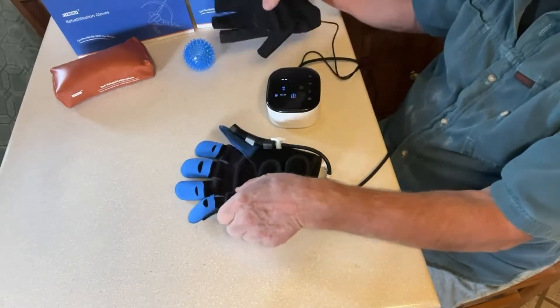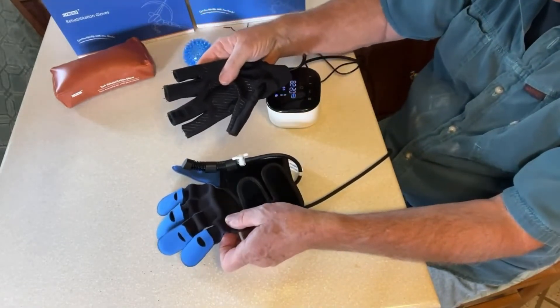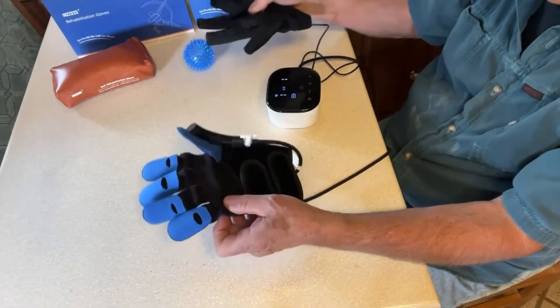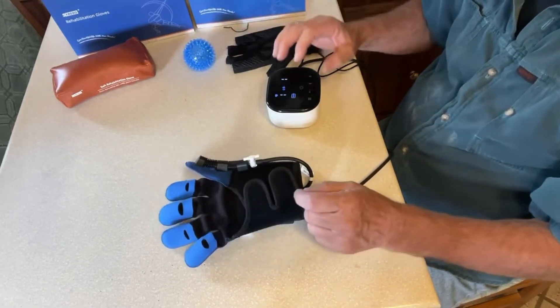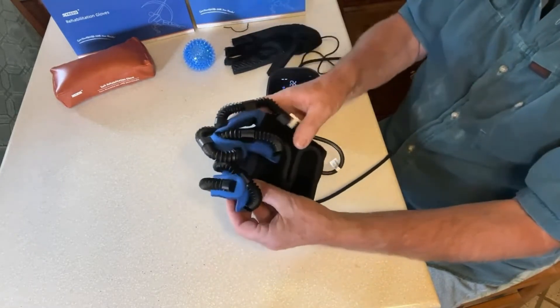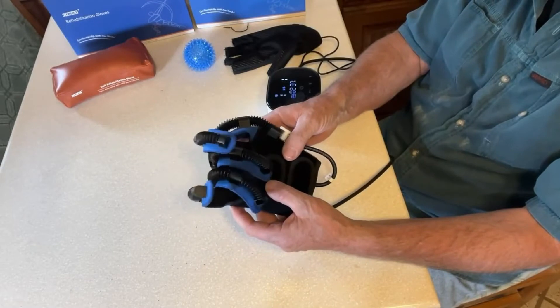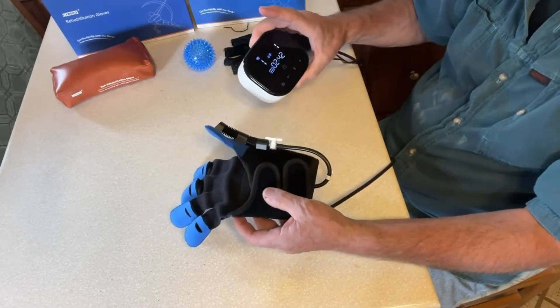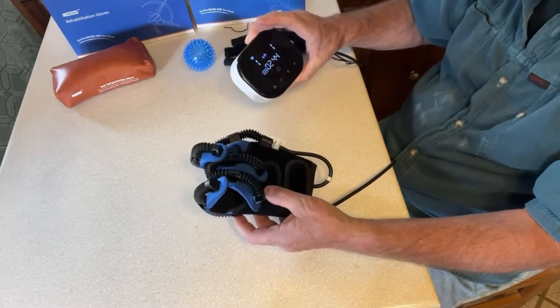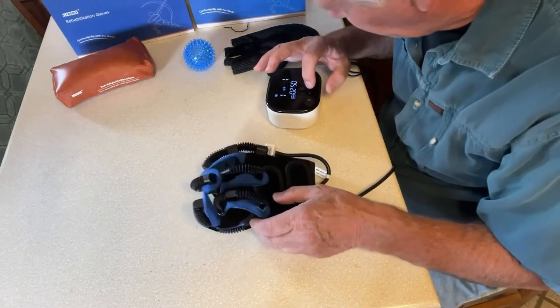In passive training mode, the robotic glove simply opens and closes repeatedly. The other mode is mirror training, where you put the data glove on your good hand, and whatever you do with your good hand is repeated by your debilitated hand. Let me turn it on so you can see what the glove is doing. This is the passive training mode — it's just opening and closing — and the interval of how long it stays open or closed is set on the host. Let me put it on and we'll see what it feels like.